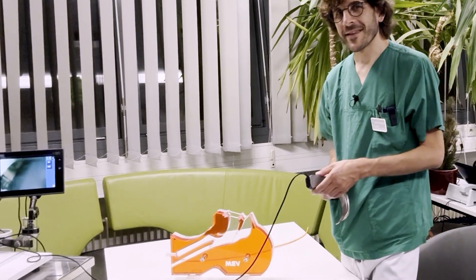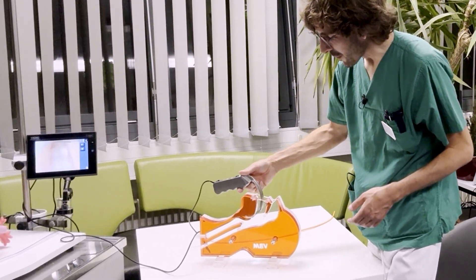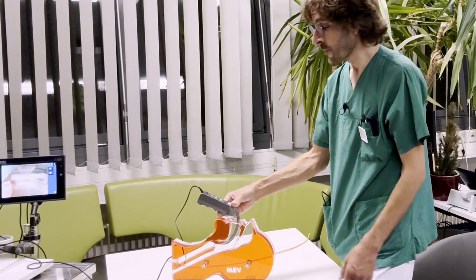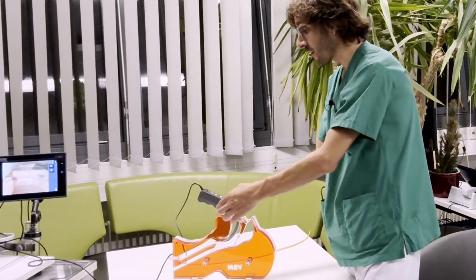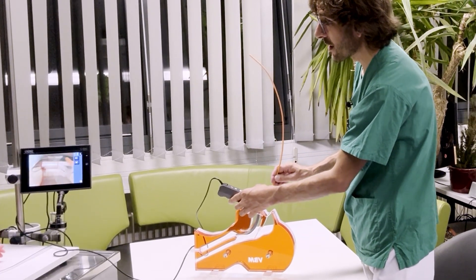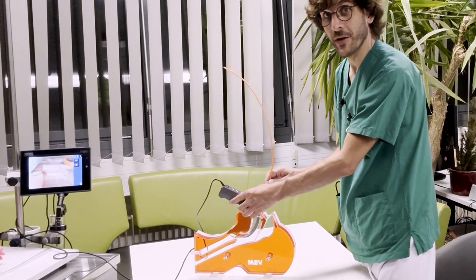What adds to the complexity is that as humans we tend to forget what we no longer see. Once we've passed the first curve — the tongue — with our device and we clearly see the glottis on the screen, we tend to forget that that first curve is still there. So whatever movement we want our intubation aid to do on the screen, it will still have to navigate around the tongue, still has to navigate around the first curve.